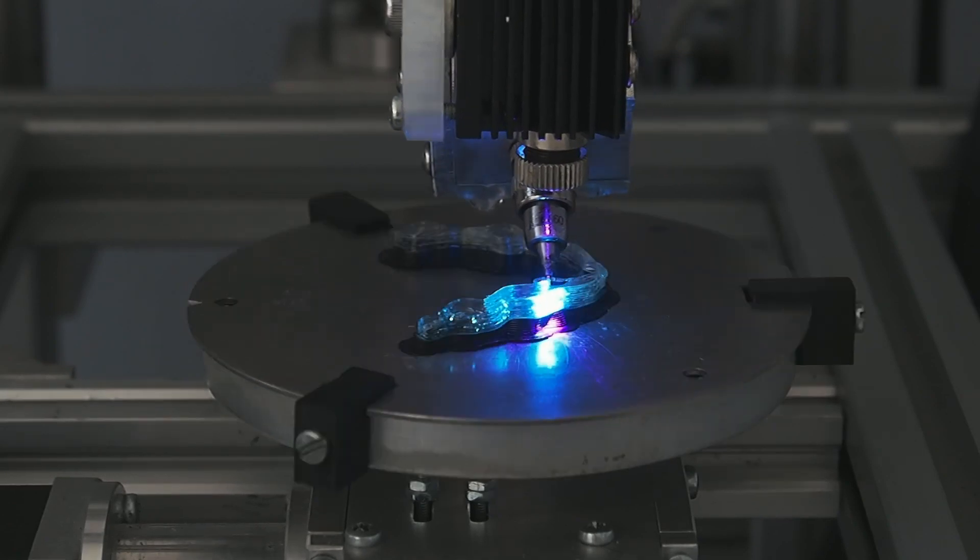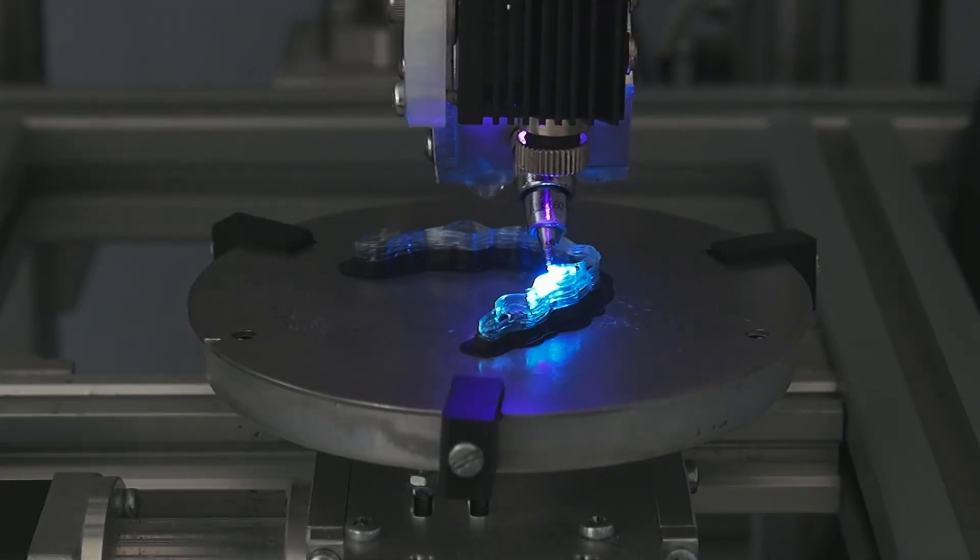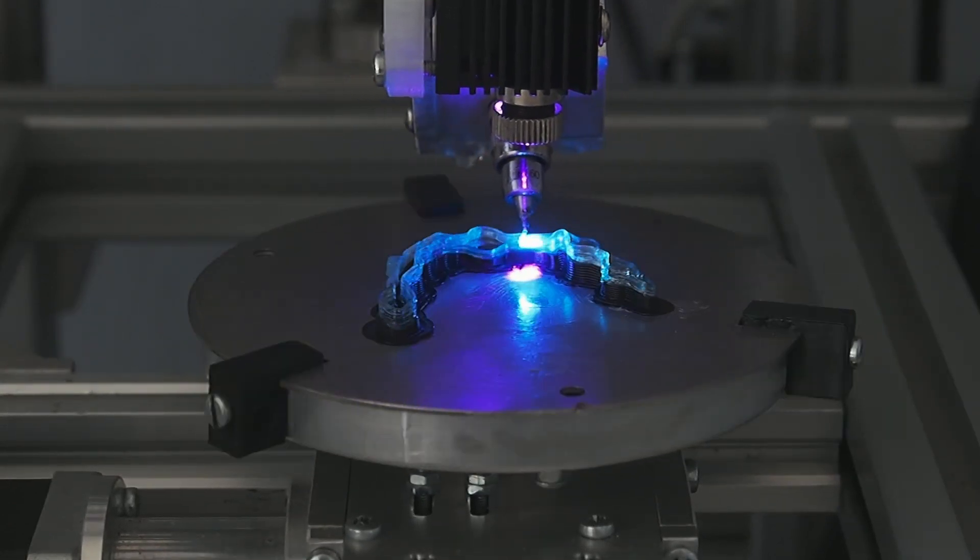We are an Italian dental startup connecting advanced 3D printing solutions with dental professionals in a simple, convenient, and modern experience.